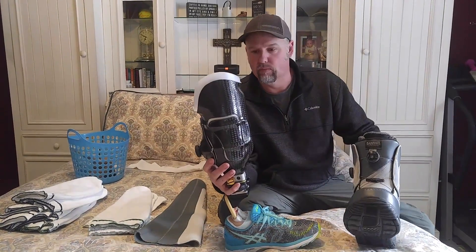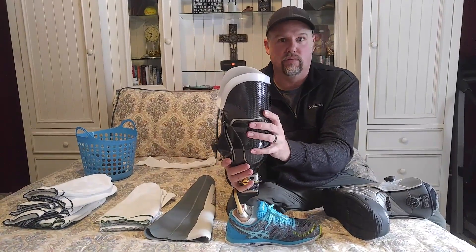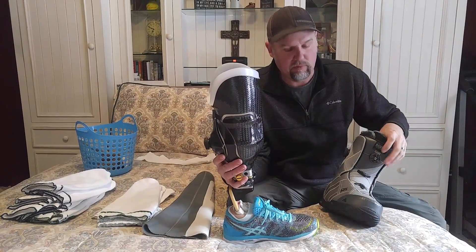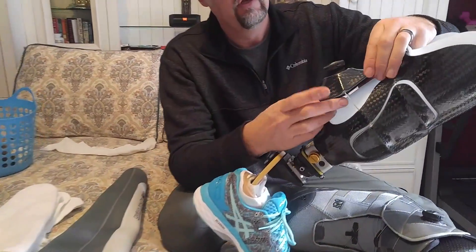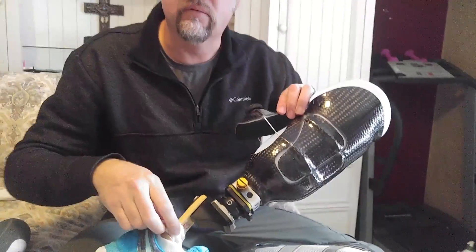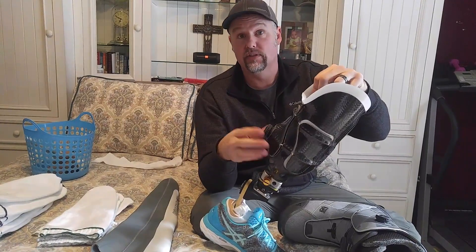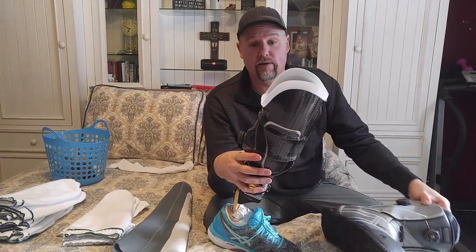One of the other differences between snowboard boots and the Click Medical Revo Limb systems: I was used to seeing metal laces with hard plastic guides and thought cable lace had to be pretty strong. What I've learned is that in these systems they actually use a cloth lace — really similar to the material used on foot socks, which is a Spectra material. It's really durable, and the cloth actually has a higher tensile strength, meaning a higher resistance to snapping and abrasion than the metal cable.